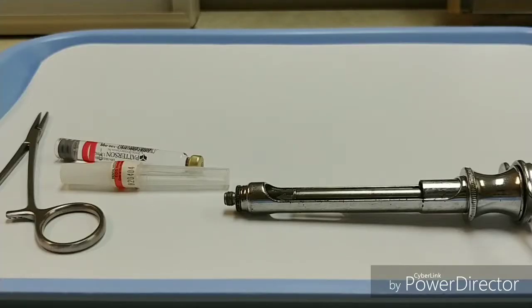To assemble my harpoon syringe for use, I'll follow three steps. The first is to insert the cartridge, second I'll engage the harpoon, and third I'll attach the needle, and I want to follow those steps in that order.